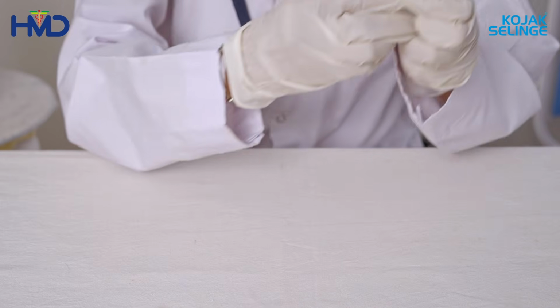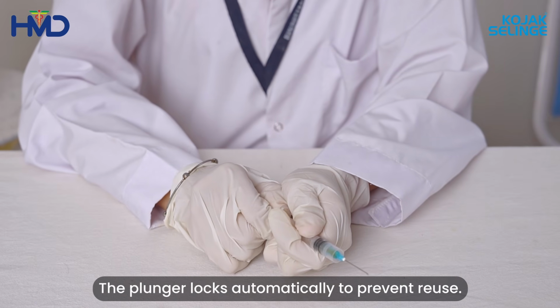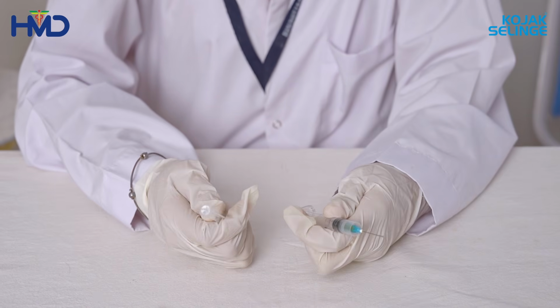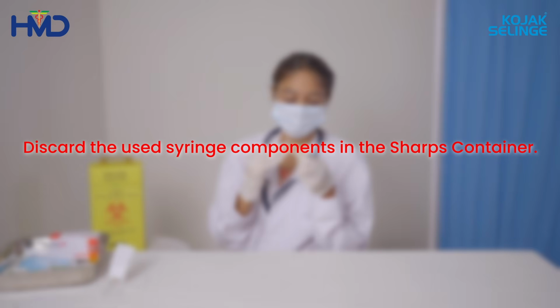After the full administration of the dose, the plunger locks automatically to prevent reuse. If reuse is attempted, the plunger will break. Discard the used syringe components in the sharps container.